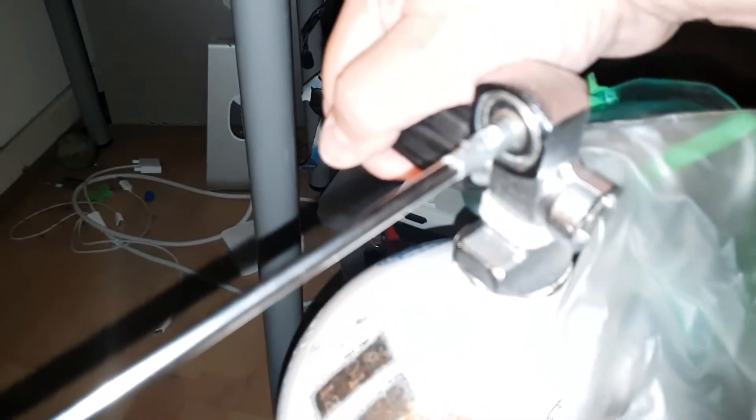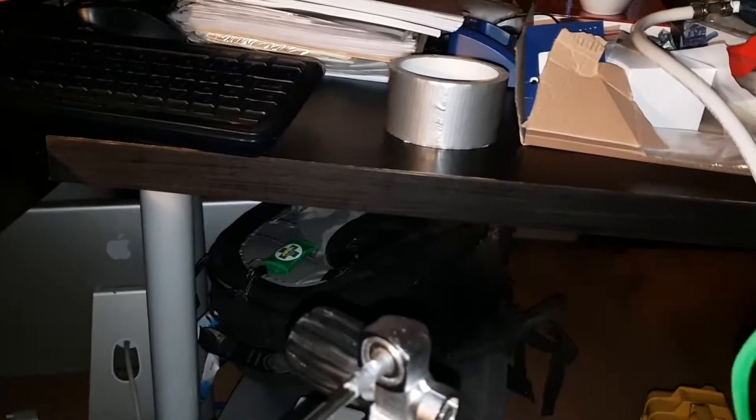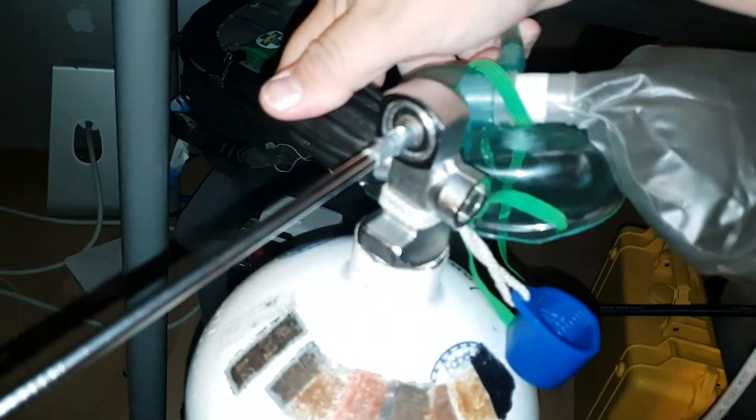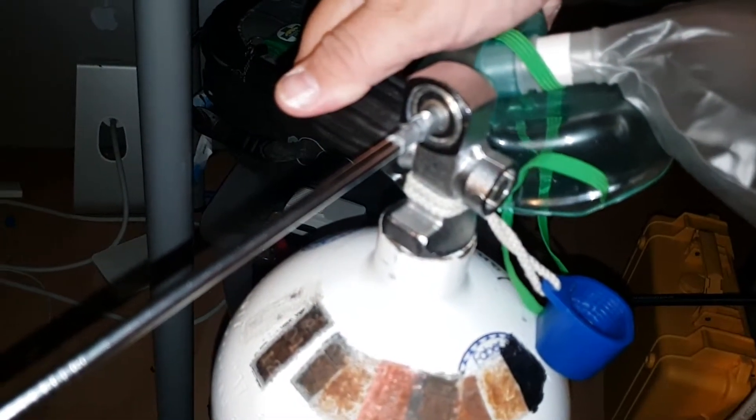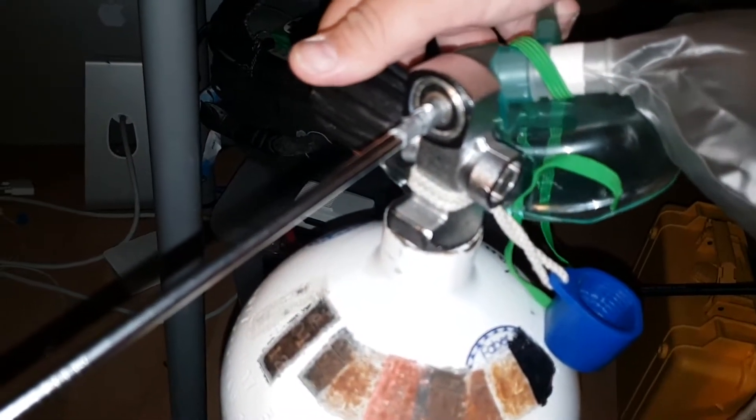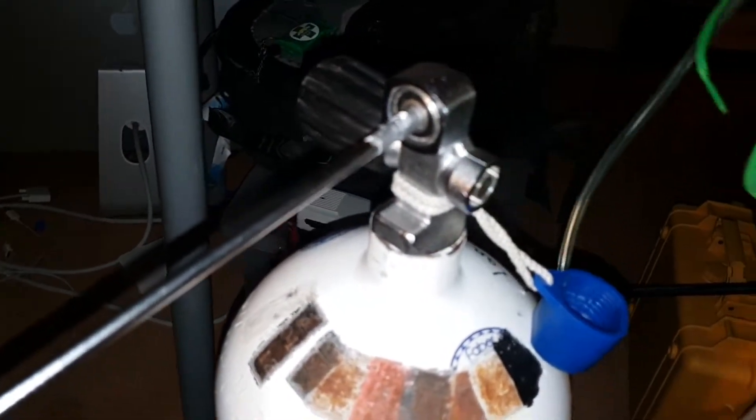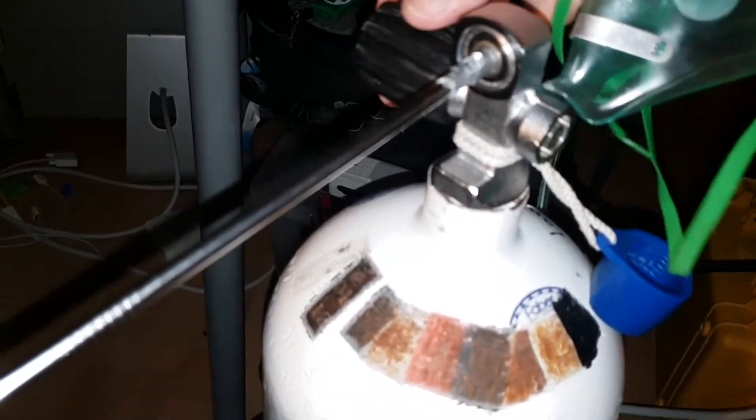Now this valve is actually sensitive enough that I can adjust the pressure for flow. If I need more flow, quite a high flow. Yeah, I just have to be a bit sensitive with the thing. There we go, again it's turned down, and we can turn it off.